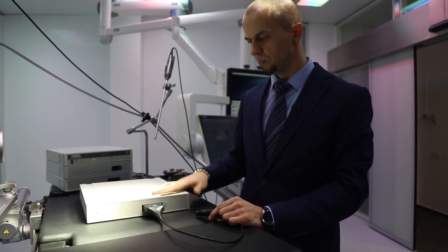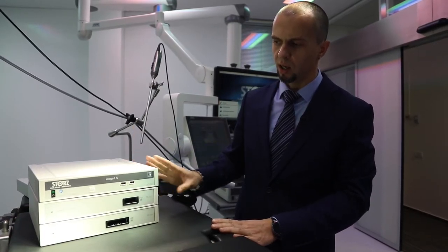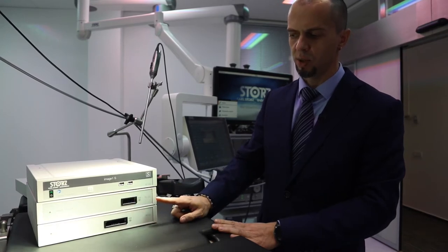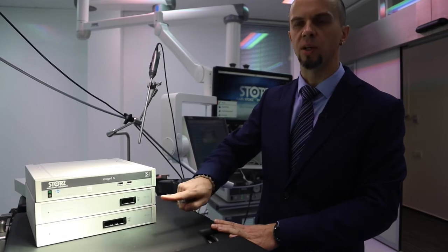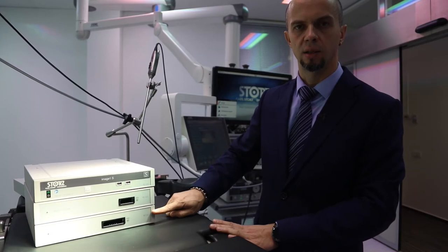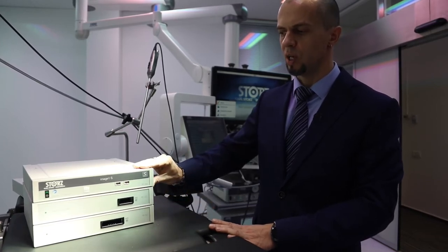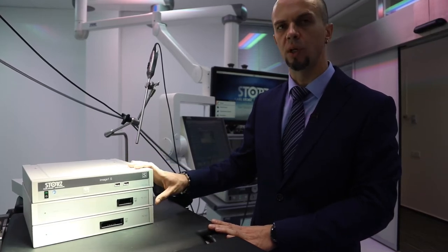Не перепутайте: H3 головки включаются через H3-Link, HX головки одночиповые более доступной версии подключаются через X-Link модуль. Видеоцентр ImageOne S в универсальной конфигурации позволяет работать со стандартными трёхчиповыми головками и параллельно, либо поочерёдно, с гибкими эндоскопами через X-Link. Выбирать видеосигнал или выводить два изображения на один монитор можно через Connect модуль с помощью клавиатуры или кнопок головки камеры.